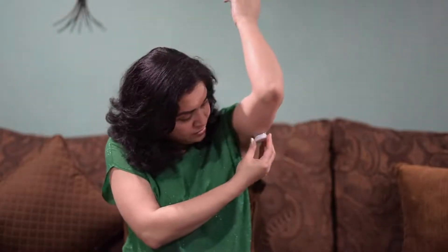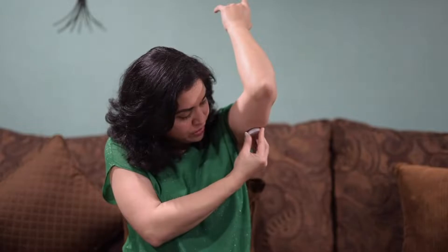Take the Bluecon device, with a pen you turn it on and the red light will flash — it means it's on. We'll stick this device on the Libre Sensor. It's very quick and simple.